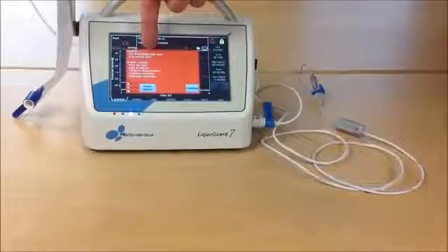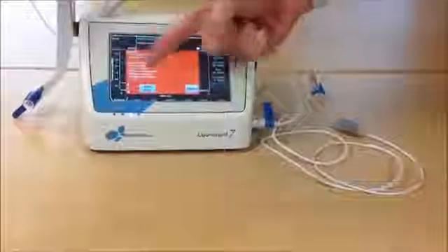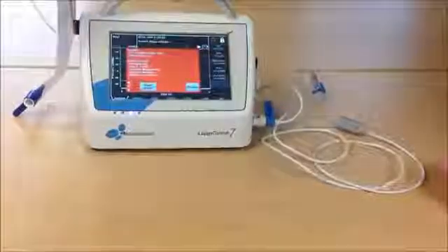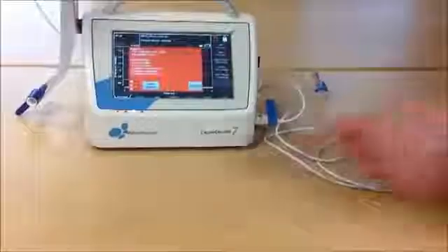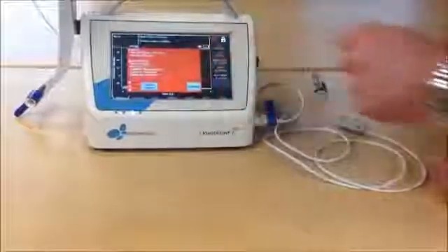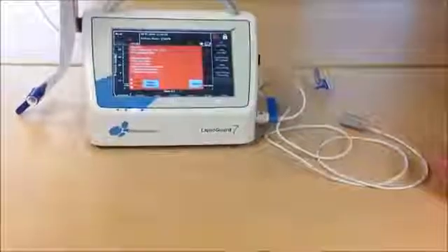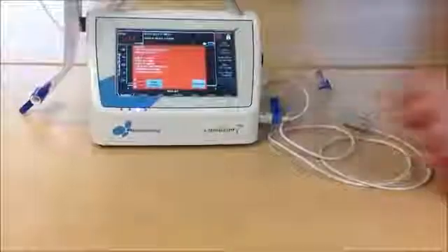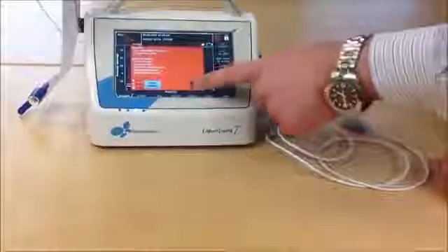Pulsation lost alarm. Here we see possible reasons for this alarm. And if we want to, we can silent this alarm for 2, 10 or 30 minutes, our choice. And if you want to get rid of this red alarm window, you press the continue button.